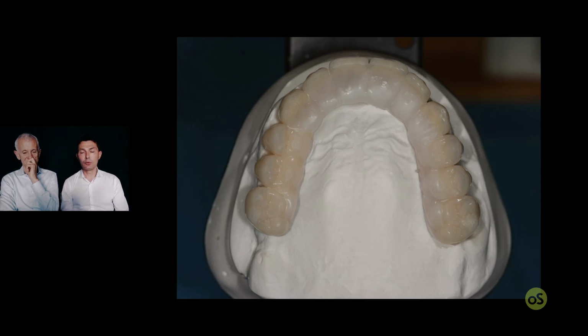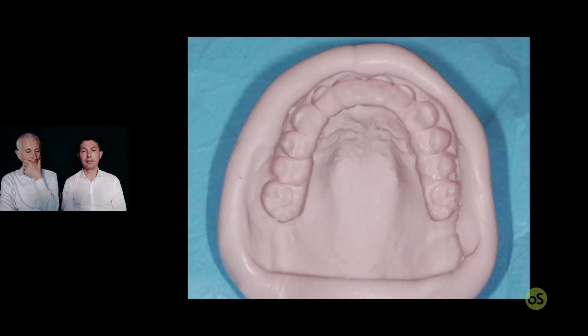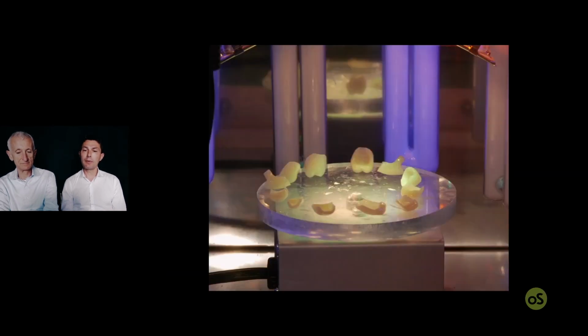Now, for sure, it's time to increase the lingual surface, because the commercial veneer doesn't have the lingual surface, and add some wax and get the mask. After the curing of the silicone, open the mask, remove the wax, and now it's time to sandblast the teeth and put on the primer in order to open the link between the commercial teeth and the new flowable composite. Put the primer and place in the device for 3 minutes.